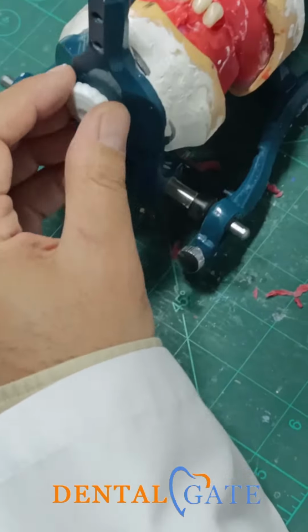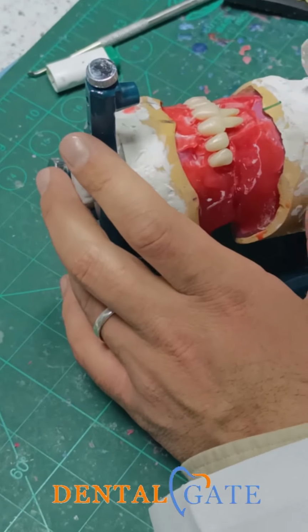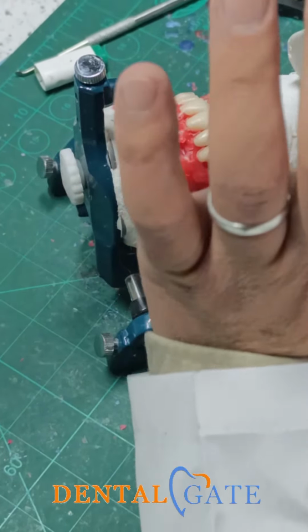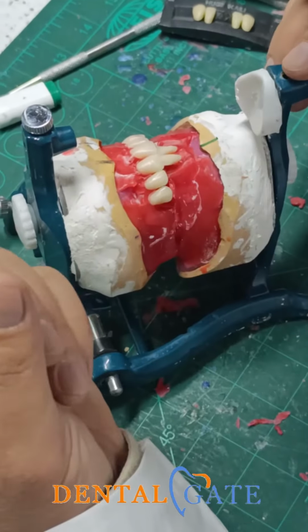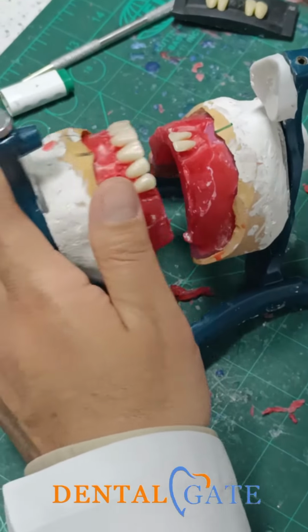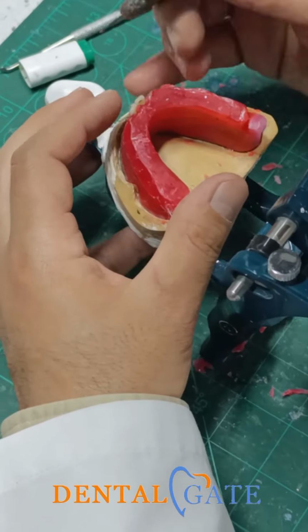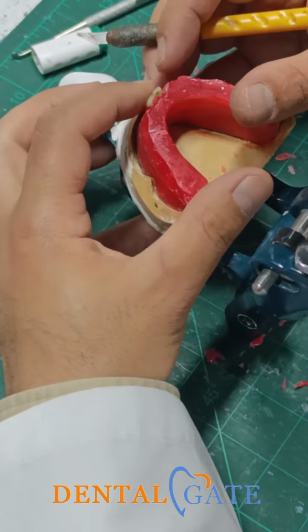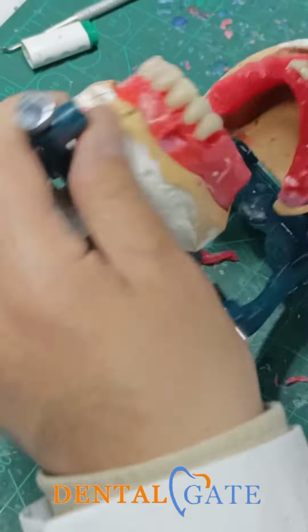So you can see, this is my double check. I will make another check. Don't start with another one. Please pay attention to performing all the criteria for one tooth. After that, start with the next one. But I think I had a severe rotation here, but it's not necessary to make an adjustment now. I will just make a lateral.